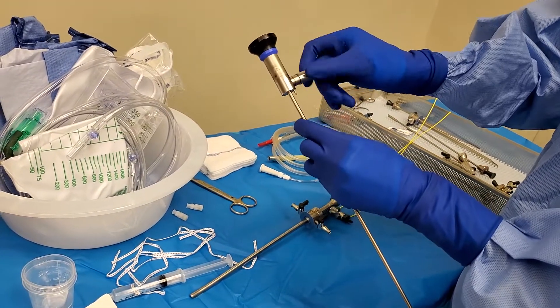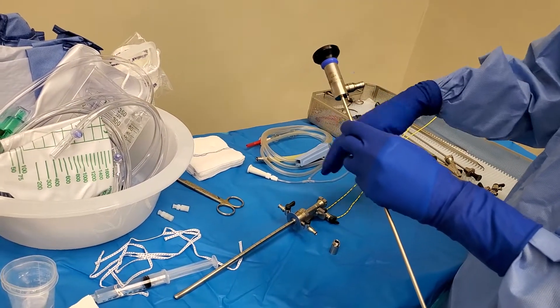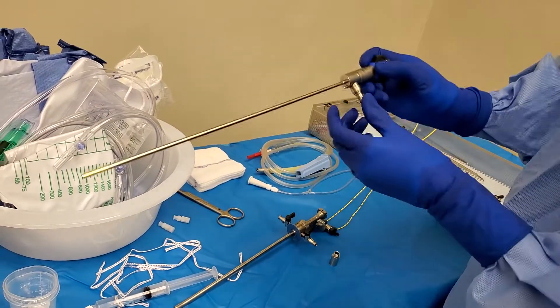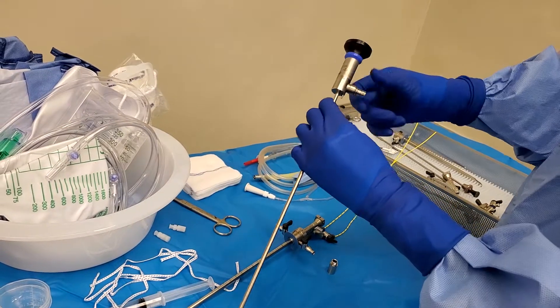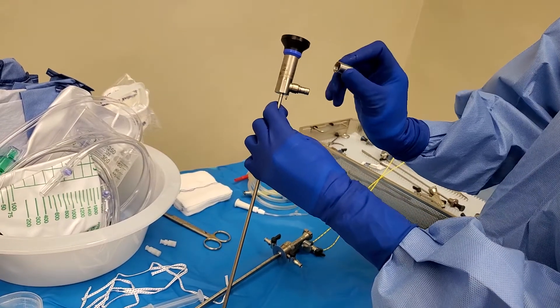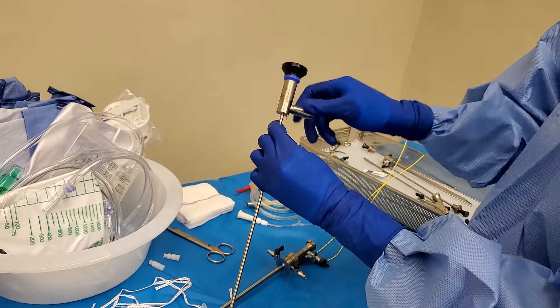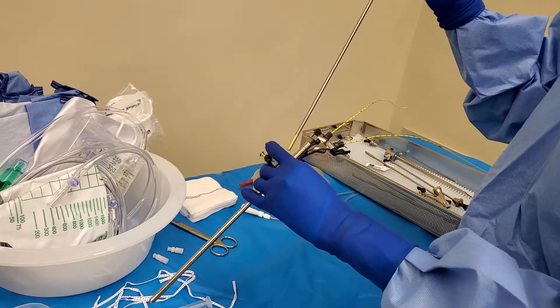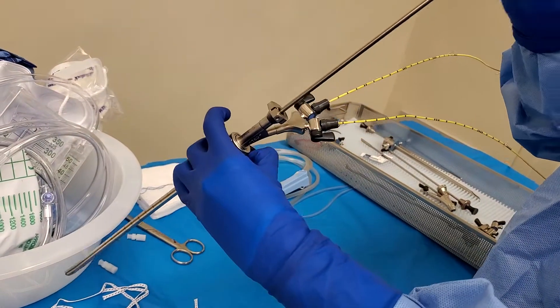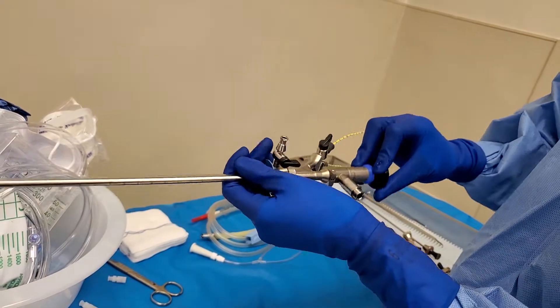I installed this one — I don't have the camera and stuff, so I'm going to go show you guys that after. This is how it comes with the 12 degree scope. This will not fit in the camera and the lighted cord, so they have an extension. You just plug this in there, and then this goes smoothly in here, and then you should hear a click. And then that's it.